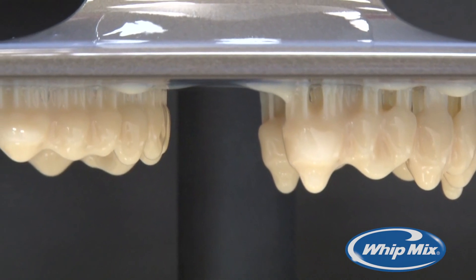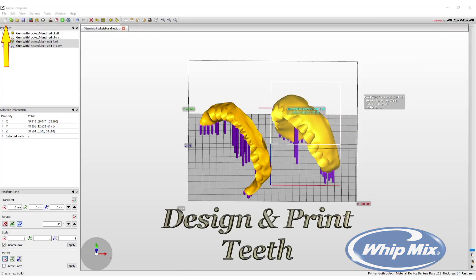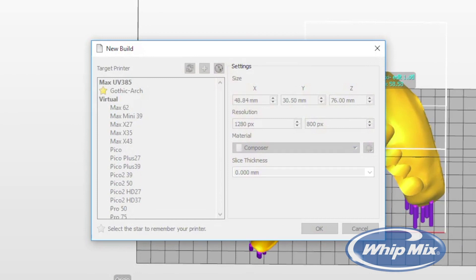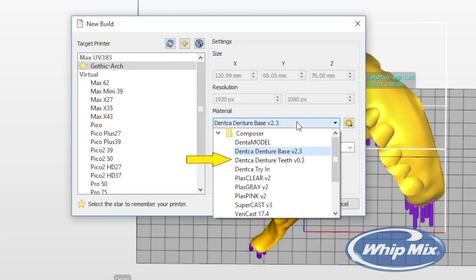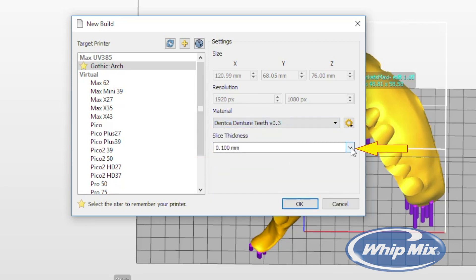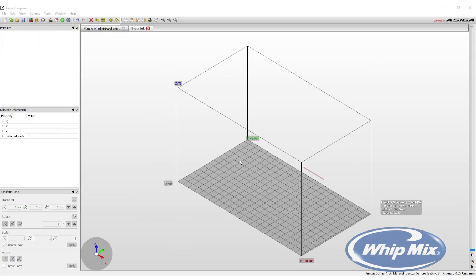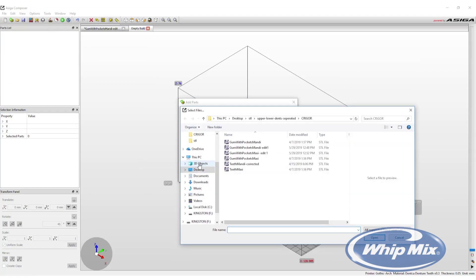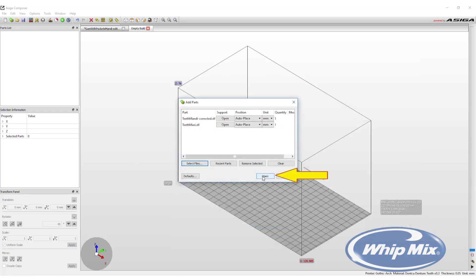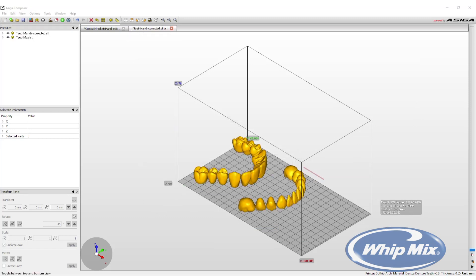The next step is to print the denture teeth. Start a new build by selecting the New Build option in the top options line. To change the material for the tooth print, click on the drop-down menu and select the denture tooth material. The slice thickness must be at least 50 microns, which can be changed in the slice thickness drop-down menu. Then press OK. A new build project will now open. Click Add Parts from the menu bar in the upper left corner. Click Select File and then find and select the teeth scan file. If files are separated as maxillary and mandibular teeth, they can be opened at the same time. Press Open and then Open again — the teeth scans will now be imported into the print software.